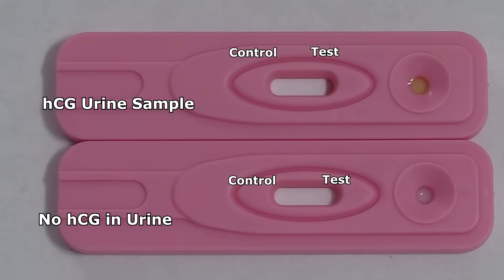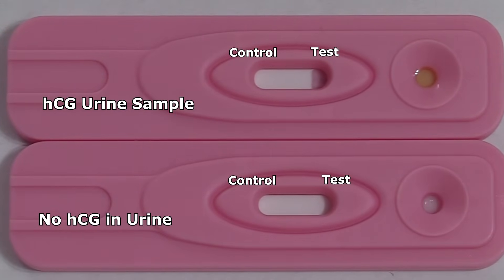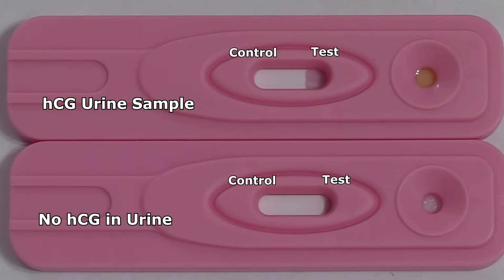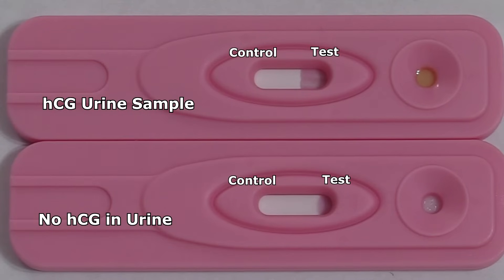We're going to let that go for three minutes, because for this particular test they say to wait three minutes to read the results, but don't read the results after five minutes because they won't be valid.